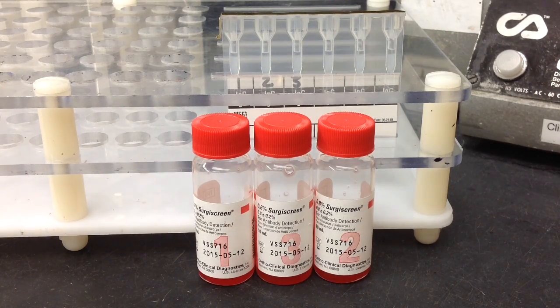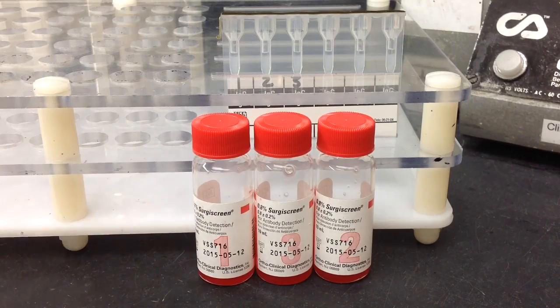In this video I'm going to show you how to perform an antibody screen using the Ortho MicroTyping Systems gel card.